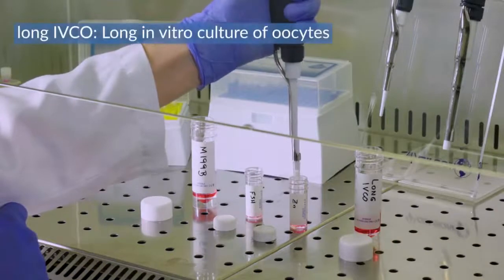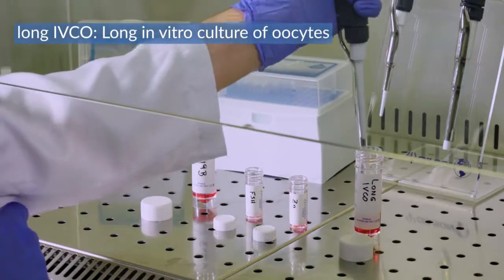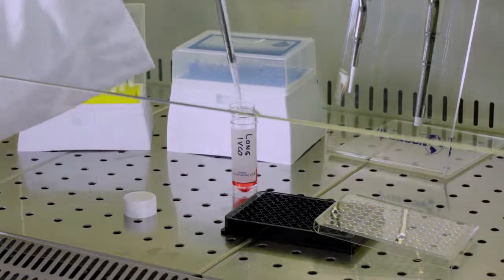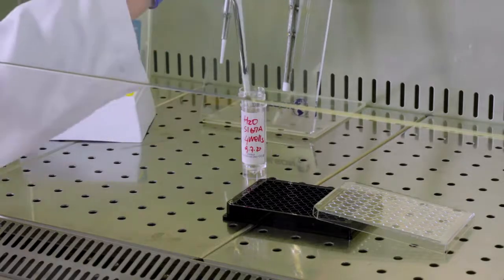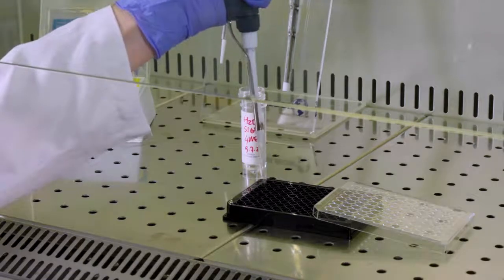Prepare long IVCO medium by supplementing basic culture medium according to manuscript directions. Add 200 microliters of long IVCO medium to each well of a 96 well coated plate. Then fill the 4 edges with sterile water to compensate for evaporation and to maintain appropriate humidity during culture.